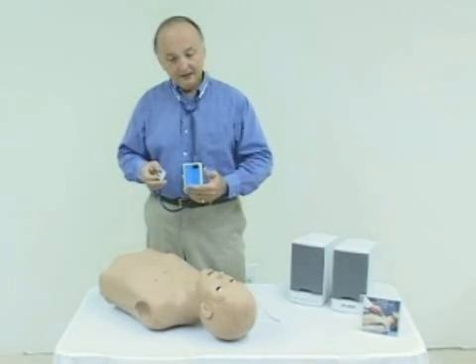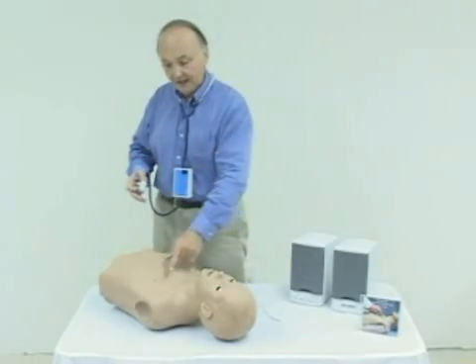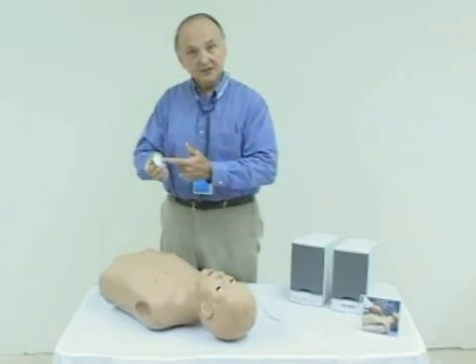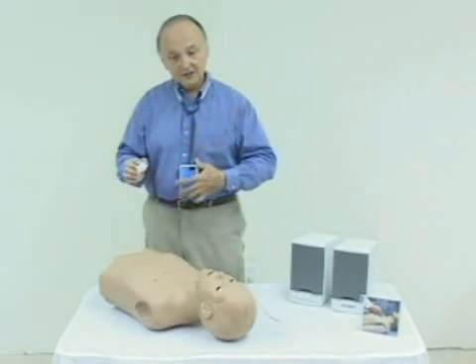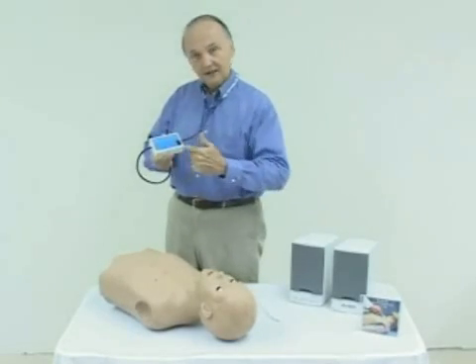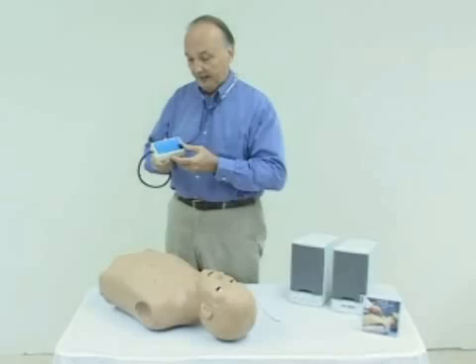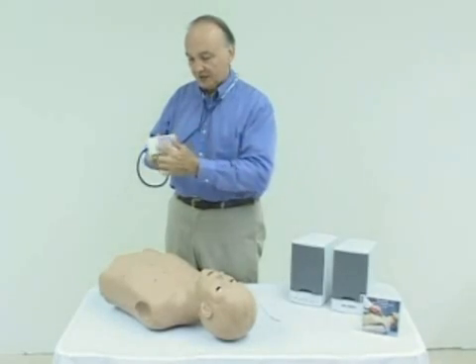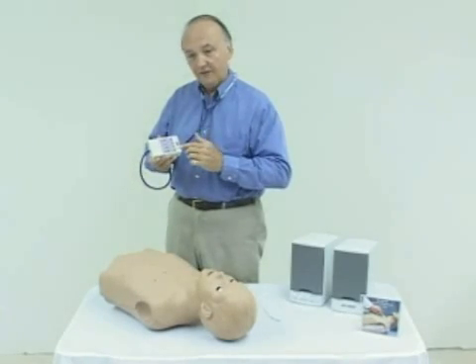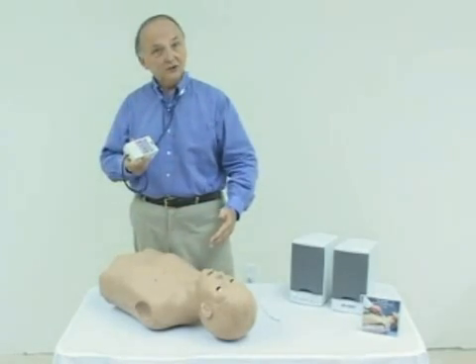You can also buy the heart and lung sound as a torso. The torso has nine different positions on the front and four different positions on the back, where when the distal end of the stethoscope is placed appropriately, the student will hear the sound in the stethoscope. The stethoscope has an electronic module with an on-off switch, powered by a nine-volt battery. On the back there's a selection of sounds and a switch that allows you to hear five different sound menus at each of 13 different locations on the mannequin, giving you a total of 65 sounds.